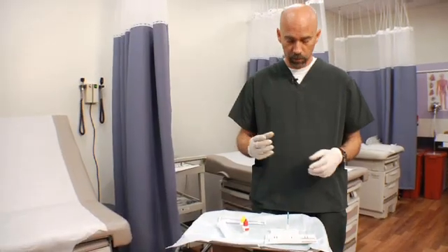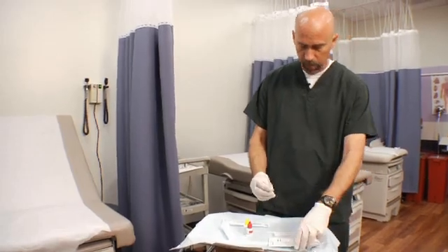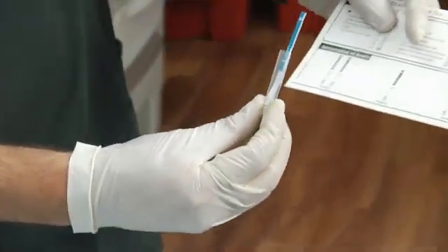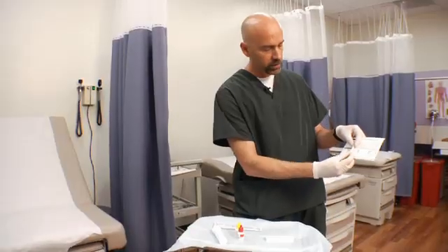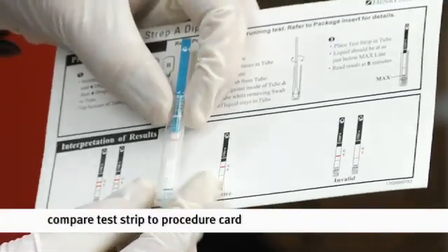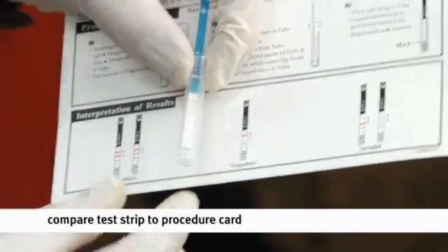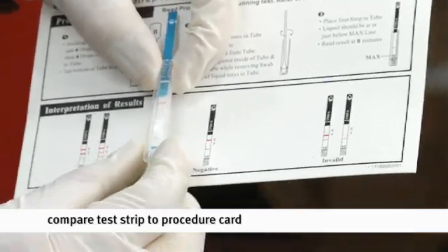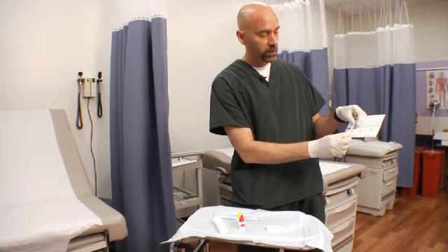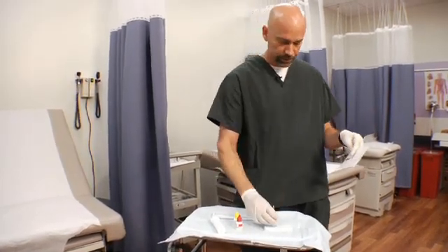5 minutes have passed, we're ready to interpret our results, and what we can do is compare our test strip to our card, and as you can see, we have one small red line which indicates that this test was negative. If it were a positive, we would have 2 red lines on the test strip as is indicated on the procedure card. And as we expected, our patient does not have strep, and this is a negative result.